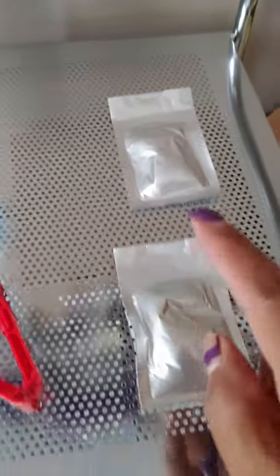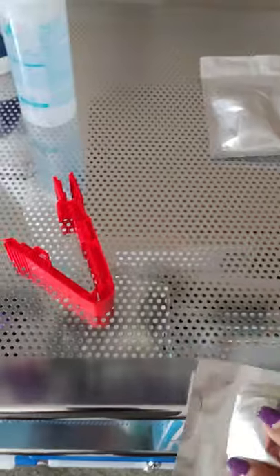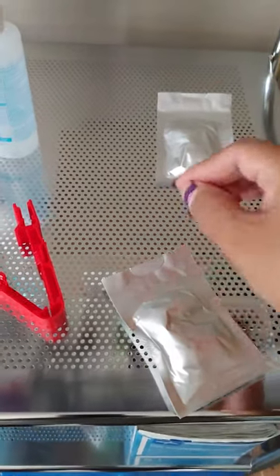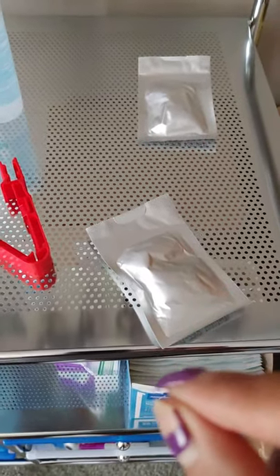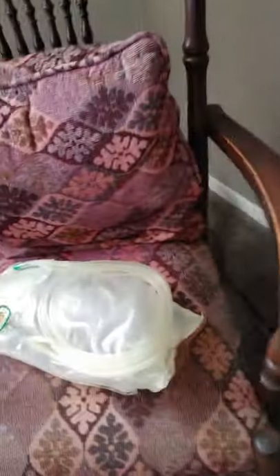I also have two caps out, because there has been a time where I accidentally placed one down ready to go and it fell off, or the cap fell down — there could be so many different things. You always want one immediately that you can open, check, and put on, because you can only keep the end of your catheter exposed to air for a very short time. Not to stress you out, but these also pinch off the hoses.